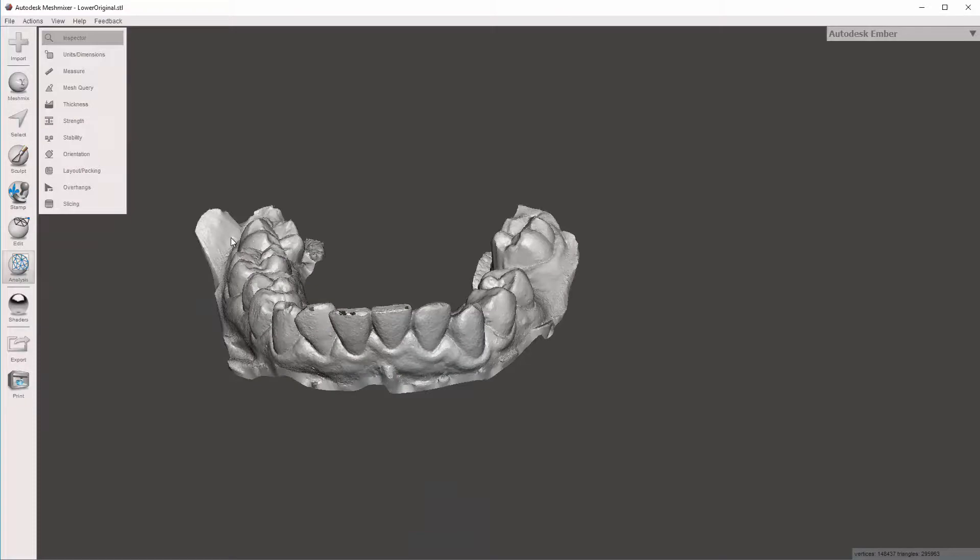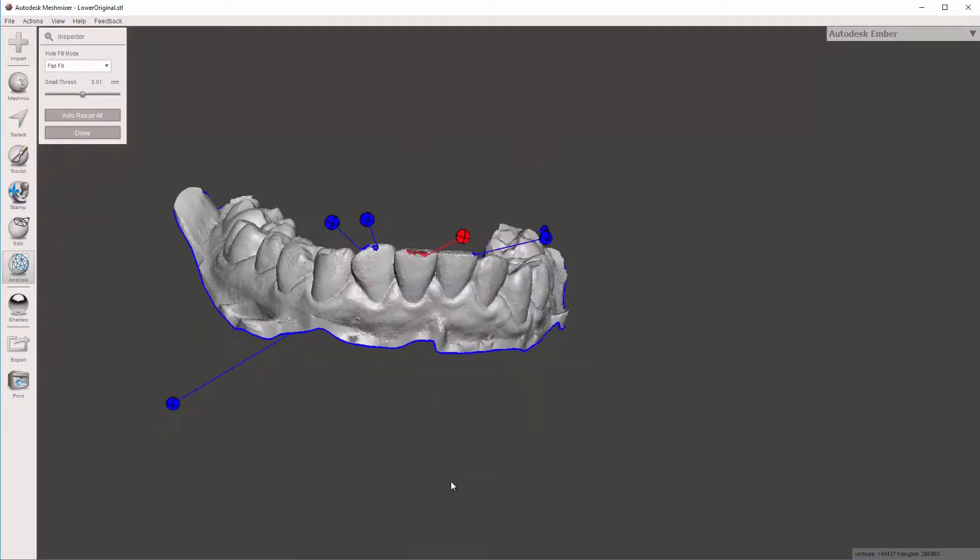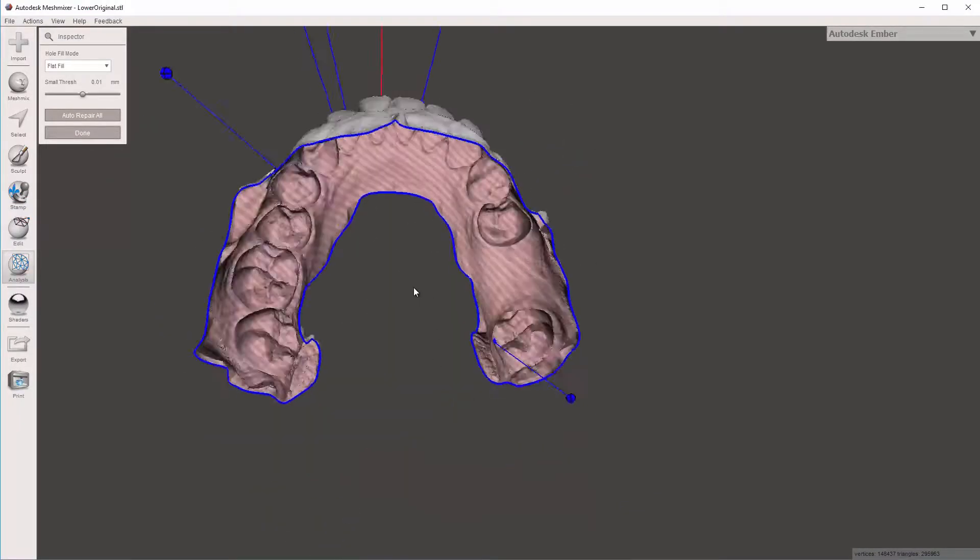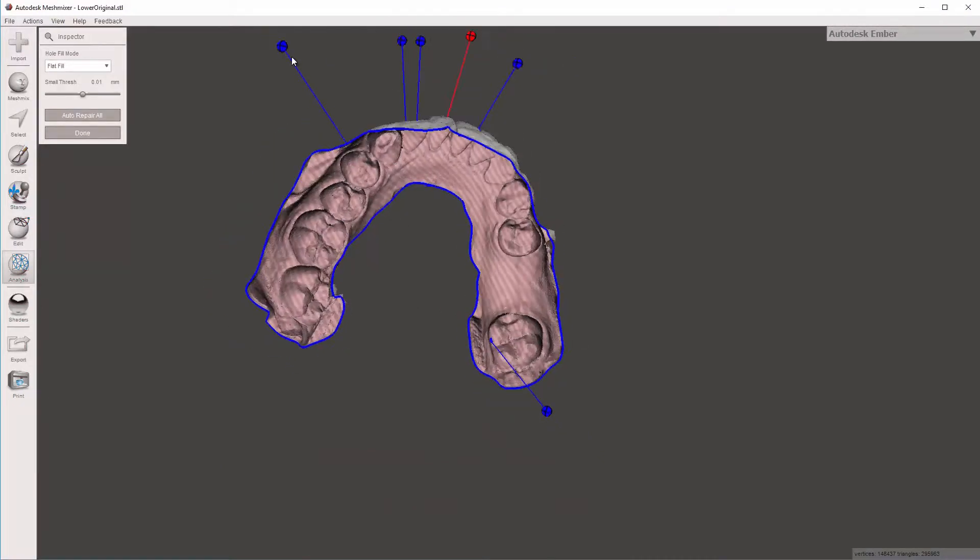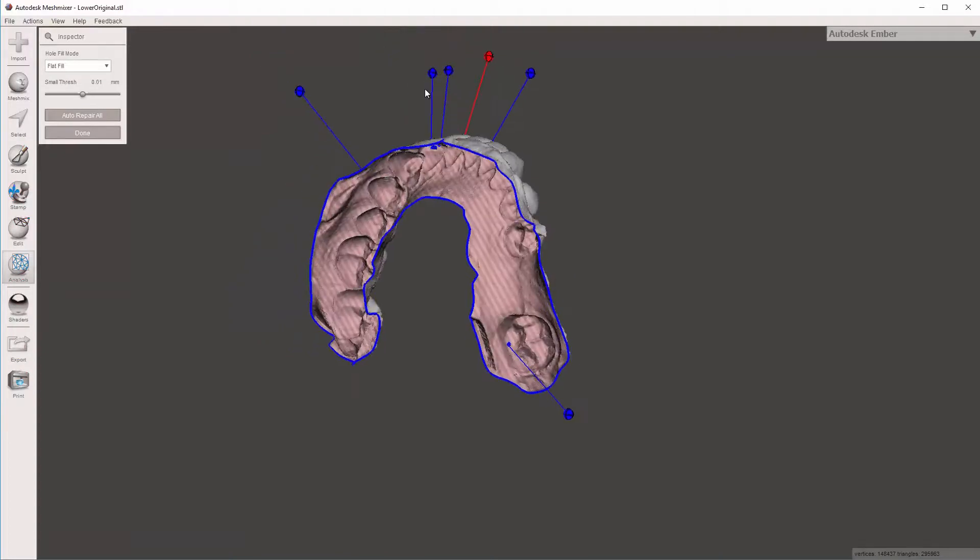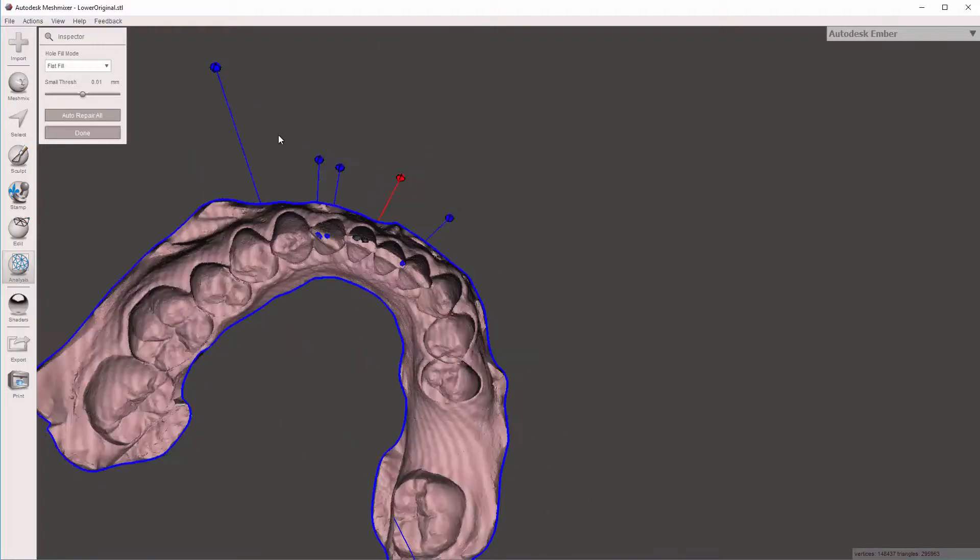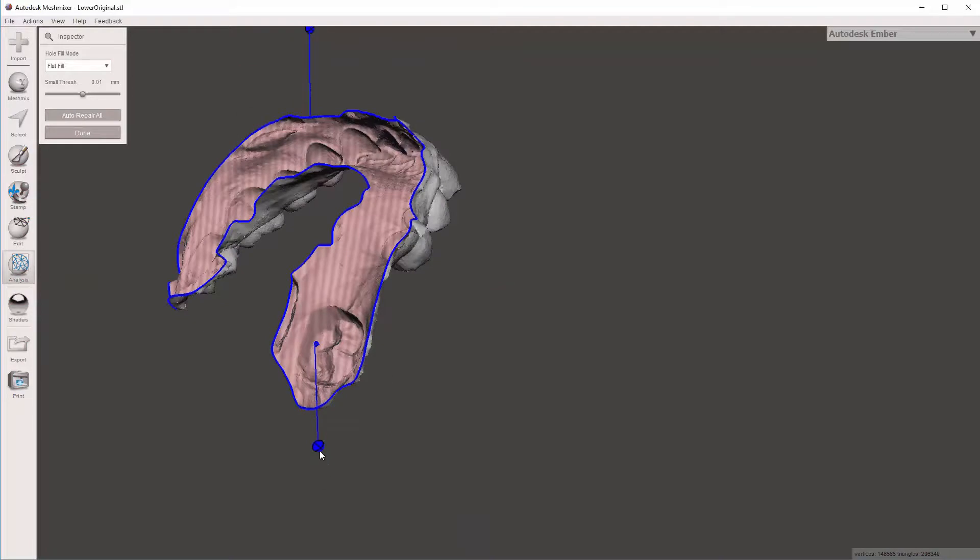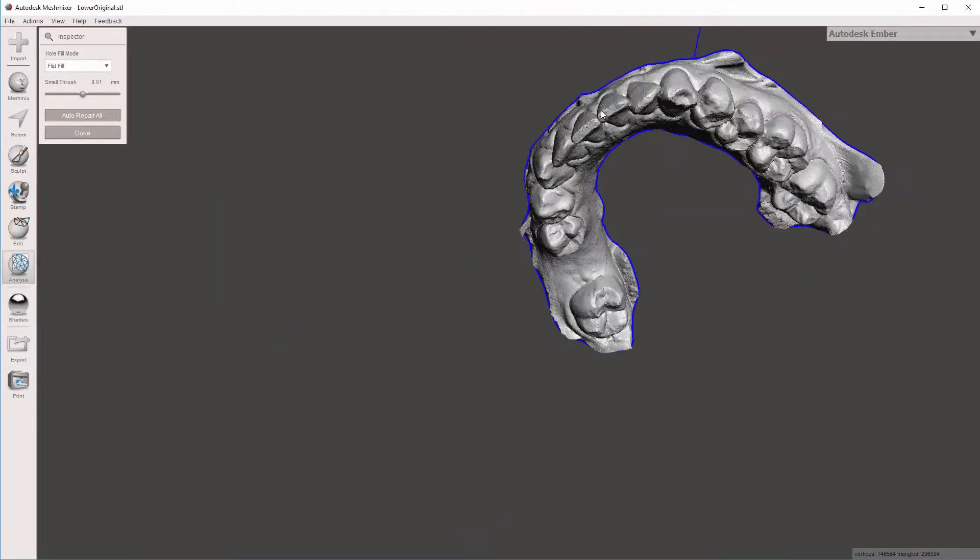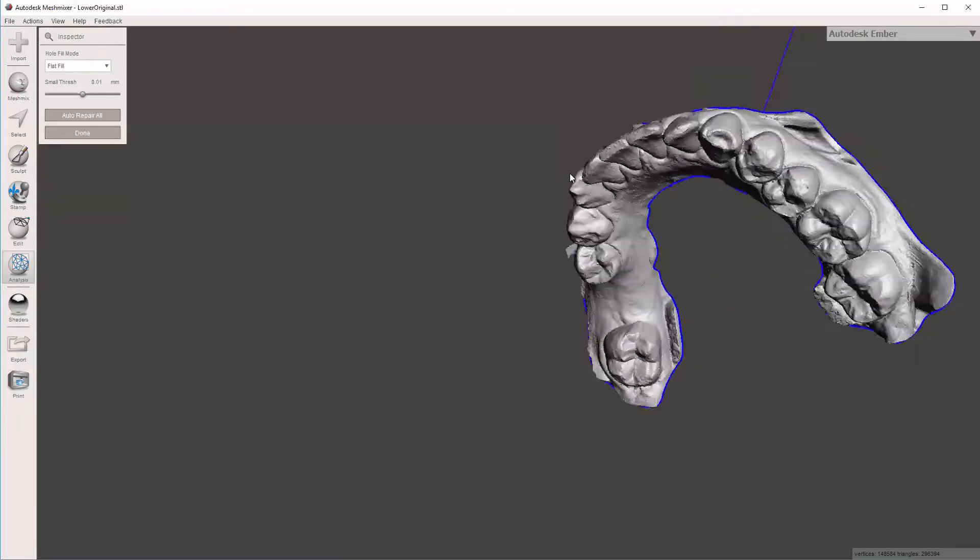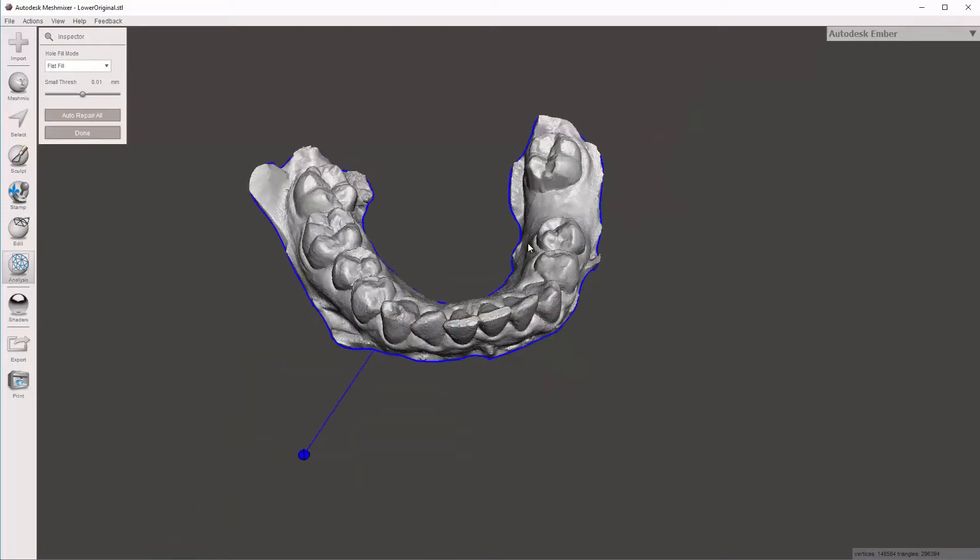Let's go to the Analysis Inspector. So you can see your little holes that have been selected. And one thing to keep in mind is there's a little hole in that inside. This little cursor is actually pointing to the entire base of the model because the software doesn't realize that it's okay to have an open model. It wants to close it. I don't really want it to do that. For what I'm going to do, and I'll show you in further videos. But if you wanted to close it, you could click on that or just hit Repair All, and it would fill that. But I prefer to selectively edit the holes. As I click each one of them, you can see the hole disappear. Occasionally, somewhat rarely, but occasionally, the correction corrects a small error but still leaves a hole. If that happens, just click Inspector again, and then it will re-highlight that hole. So I'm done at this point selecting.